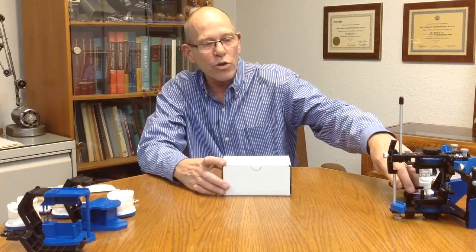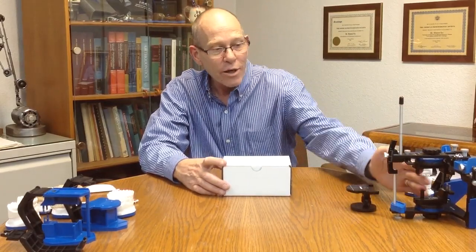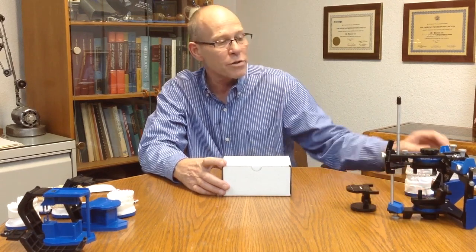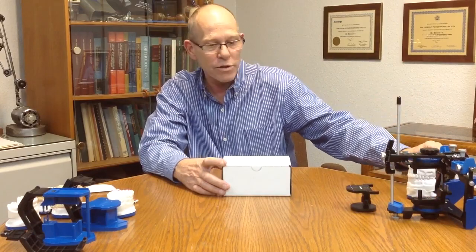Hello, my name is Thomas Lee and welcome to part 2 of my presentation on the new PAL 2.0 articulator system. In part 1 I went over the COI system and the relationship of the axis and incisal distance. I also showed a little bit on how we created the digital transfer adapter for 3D printed models and how we use the PAL articulator in conjunction with the full-size articulator.